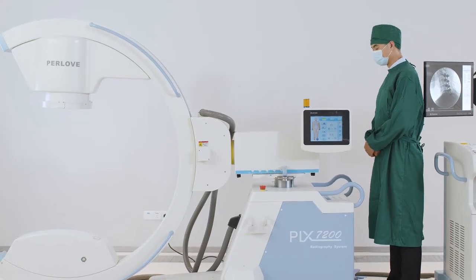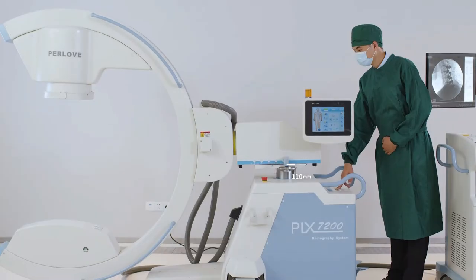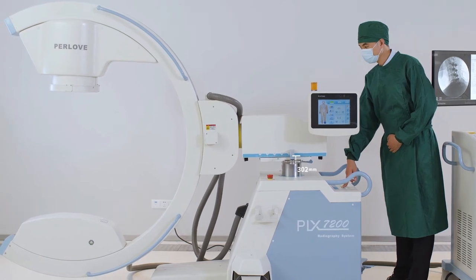4-dimensional motor driving movement technology. It can easily realize electric vertical lifting, 400 mm.